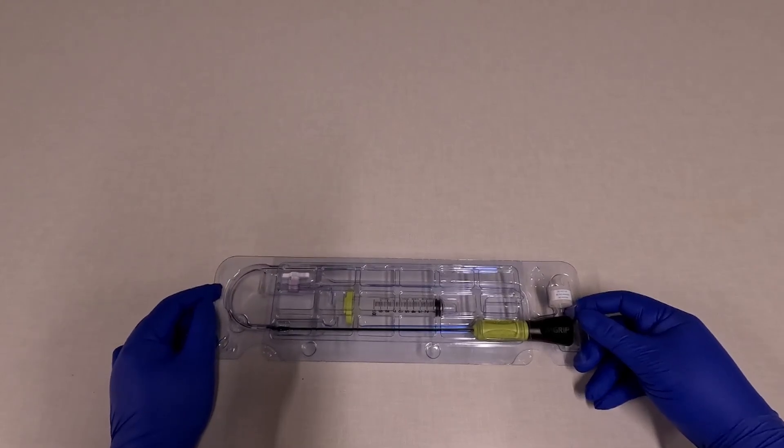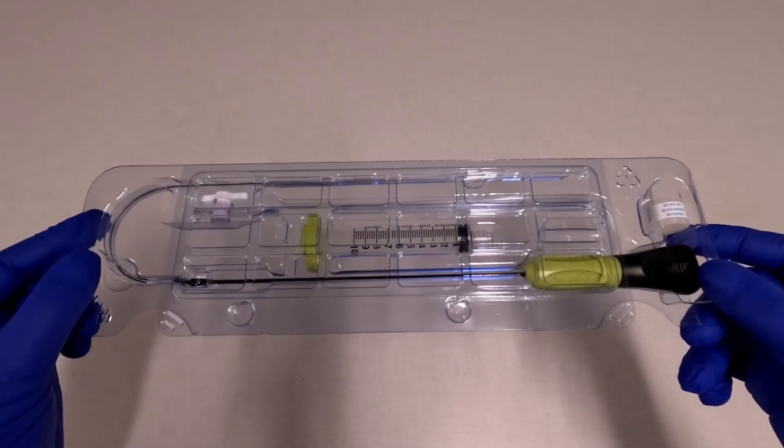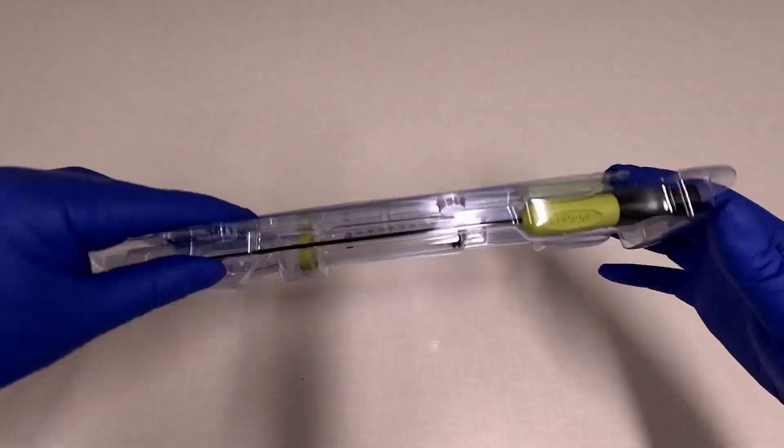Here we're going to review deployment of the Minx Grip. This is what you get in the package. It's very simple.